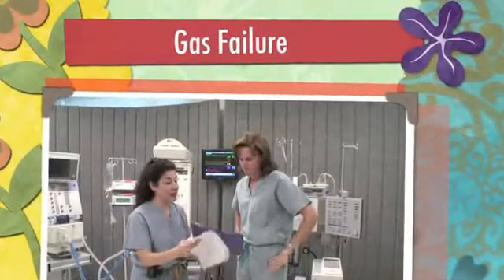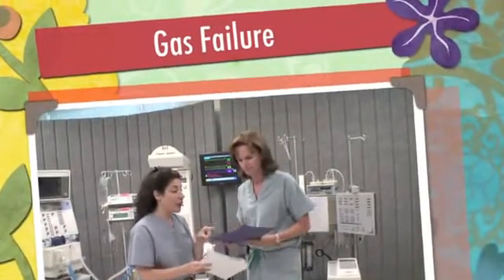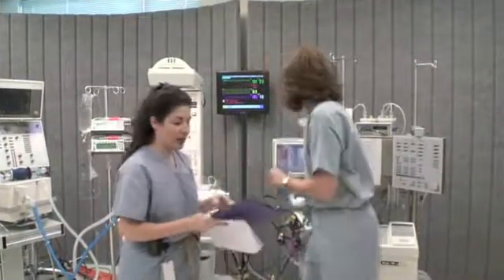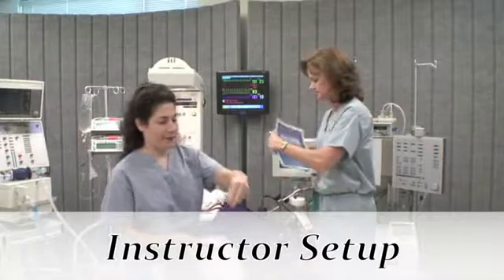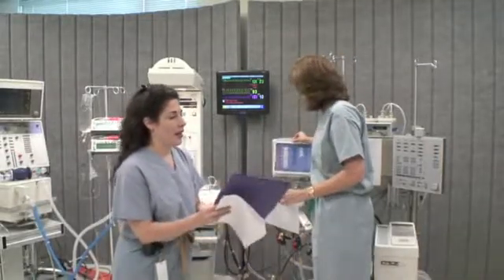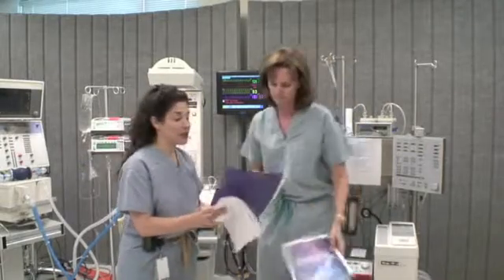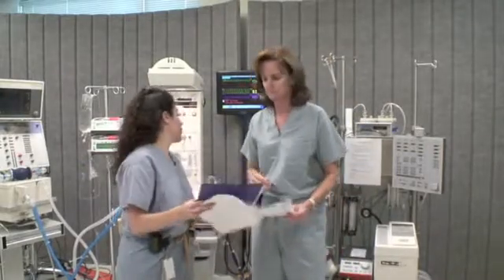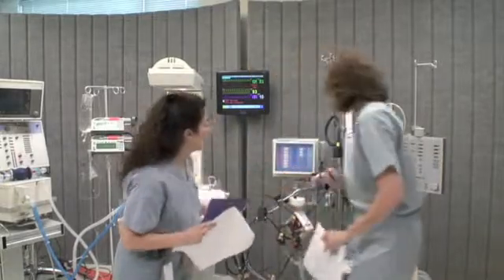This will be scenario number one — our gas failure scenario. We have a different CDI display, so we can change that to the scenario one display. We'll have a set of gases to give the student. The setup for the circuit will include disconnecting the gas line prior to starting.